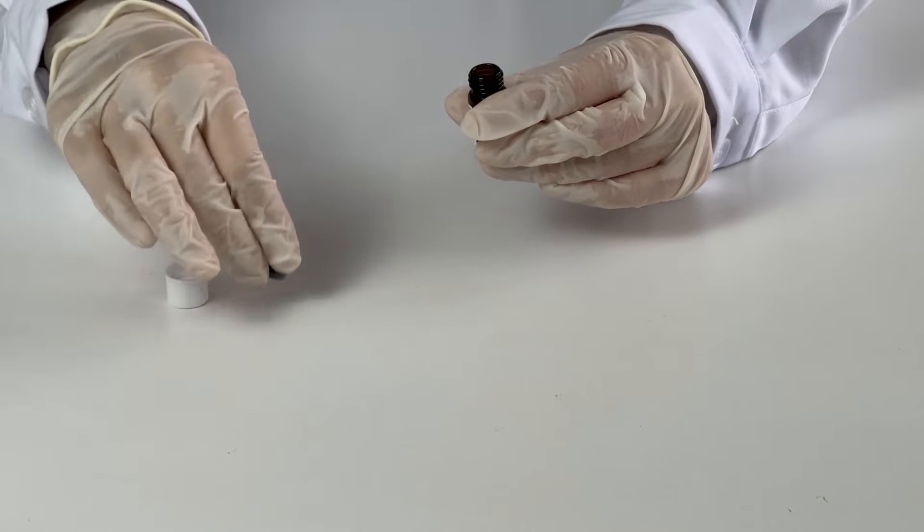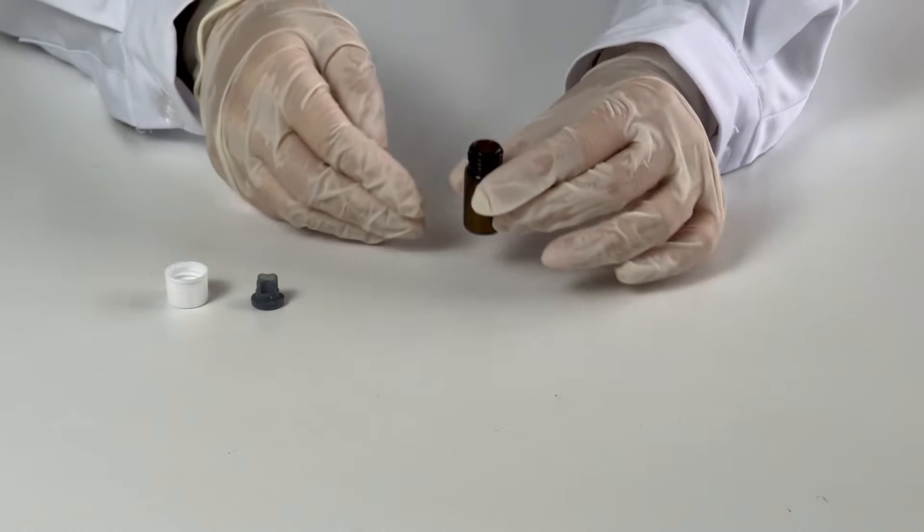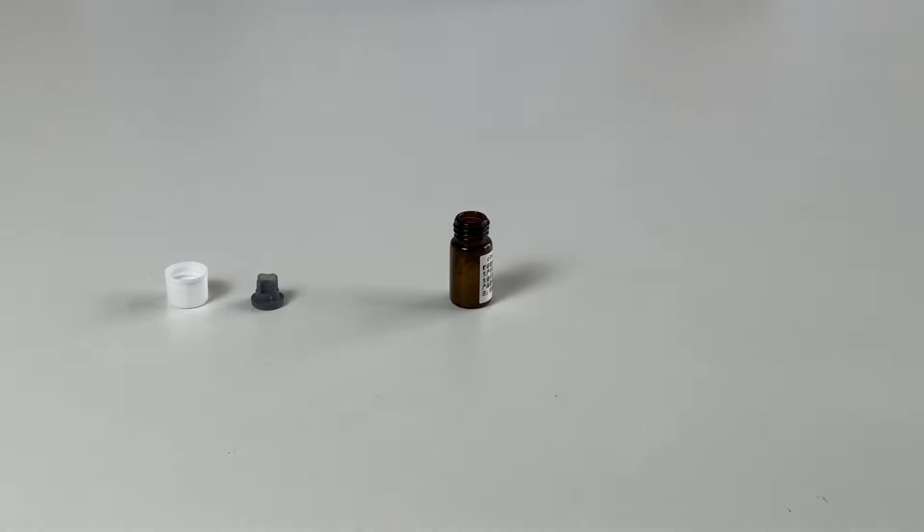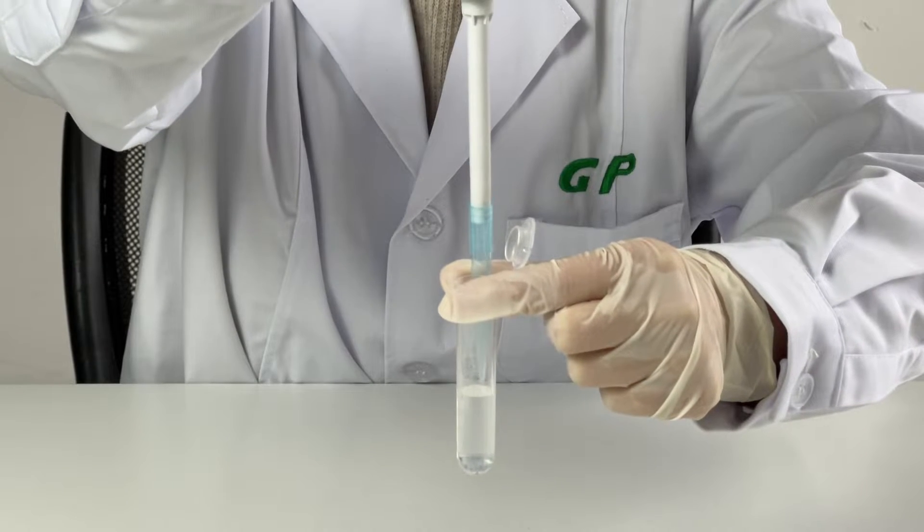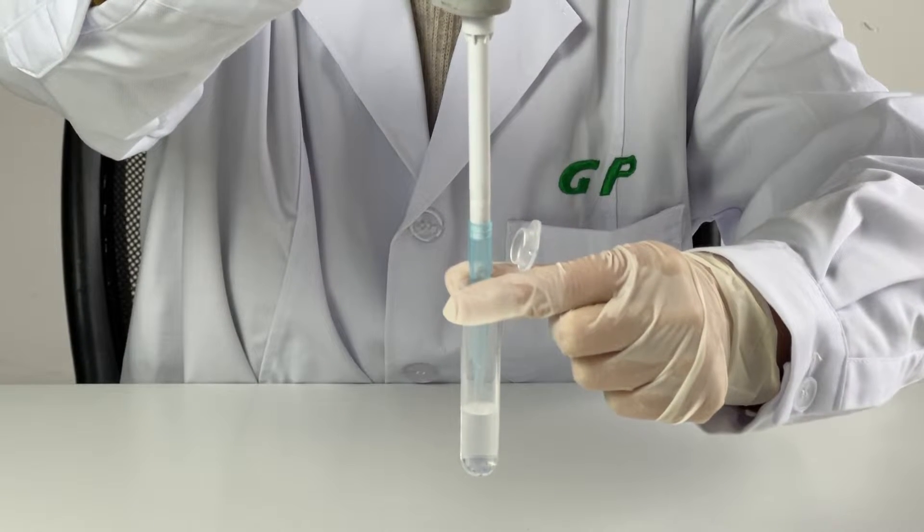Return the product to room temperature before use. Dissolve each vial control with 1 mL distilled water.